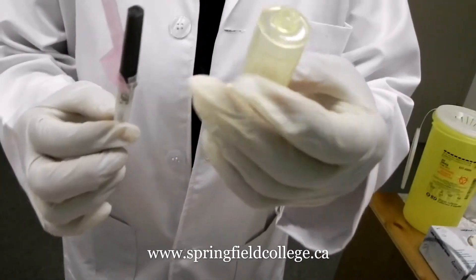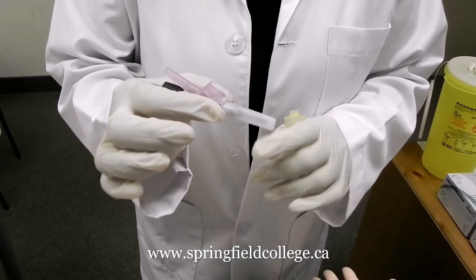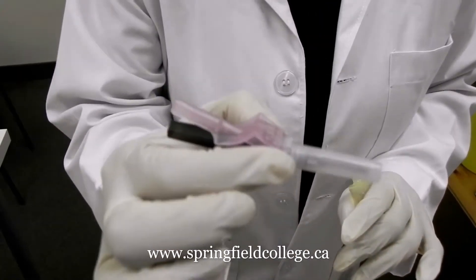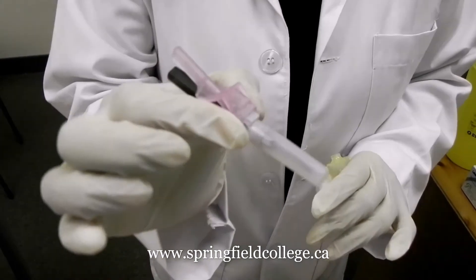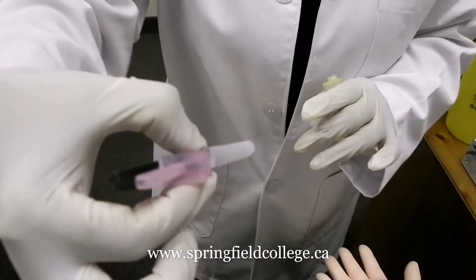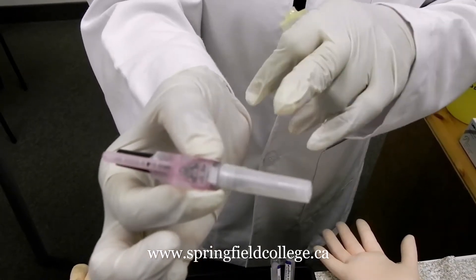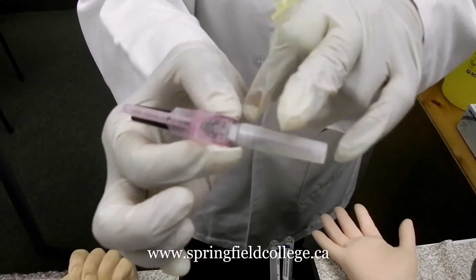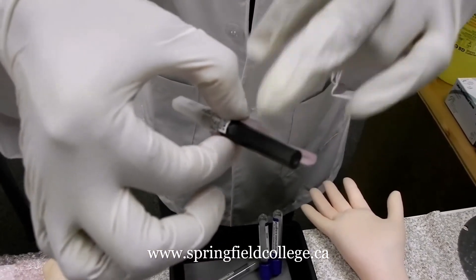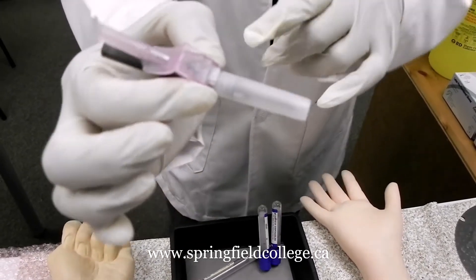When we are going to use this needle, always remember two things — very easy to remember: always hold the needle in the middle. This is important because we have a needle on both sides — the white side and the colored side. Both sides have a needle, so if we are not careful we might stick ourselves. So needle in the middle.